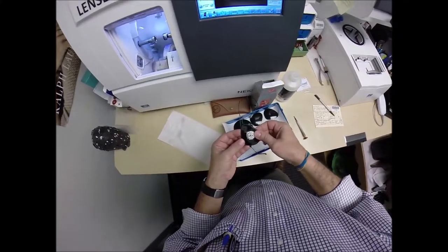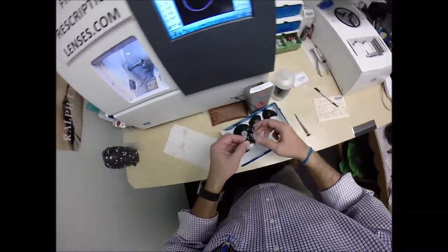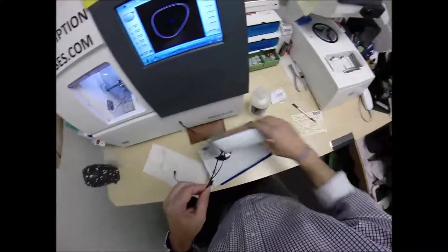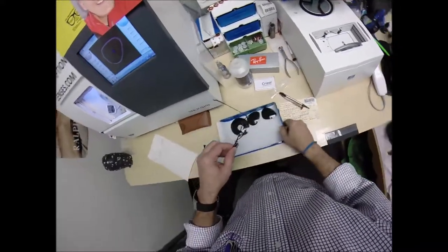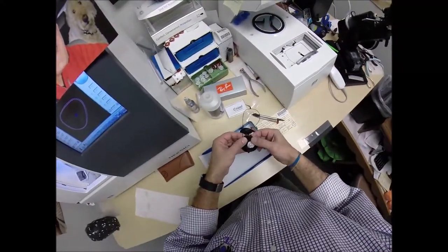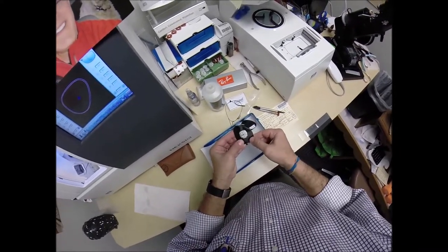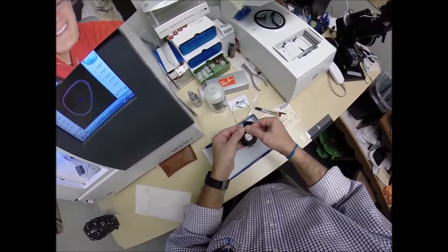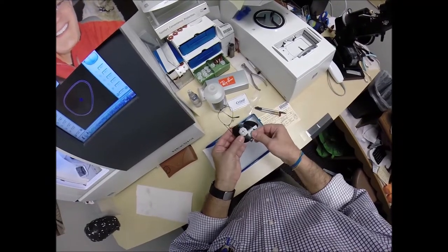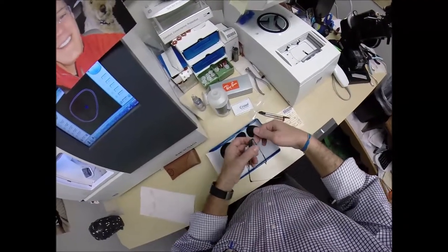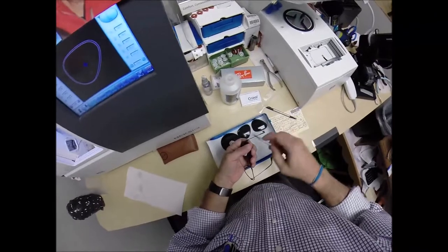We're going to tuck that in at the outside corner keeping our fingers crossed. Get out of here, Box. You're in my way. You're cramping my style. And we're going to gently push that in there. In fact, you can start at the nose. Let's gently push it in around the edges. It's in. Using my fingers to feel that it's in there all the way. Making sure everything is lined up. Turn around.